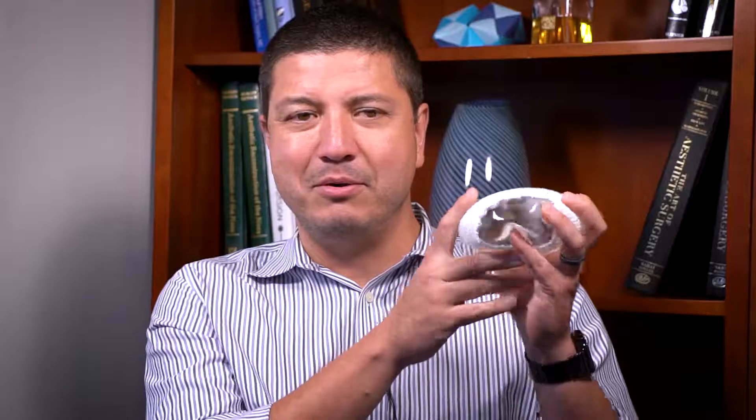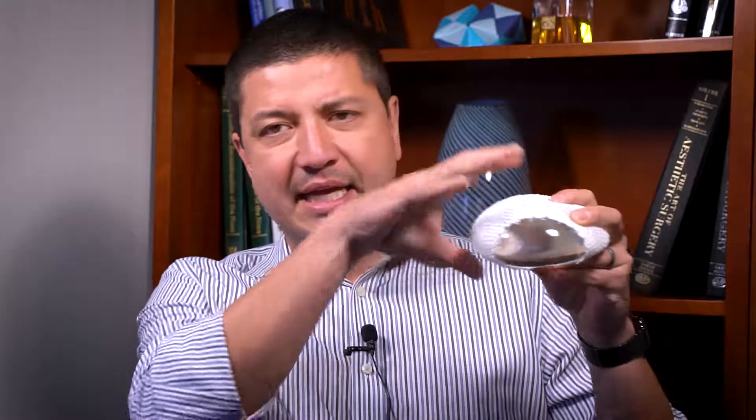So all that being said, what do we do here at Northwestern? Well, an en bloc approach can make sense sometimes. Having the implant in the pocket — as you can kind of see from this demo visual aid — if the implant is in the pocket and in the capsule, it does help to stretch out the capsule and make it nice and tight, and it helps to separate this from the rest of the patient's tissues. So there are certainly times when from a surgical standpoint it's actually easier, safer, and more efficient for us to keep everything intact as we're doing the resection.